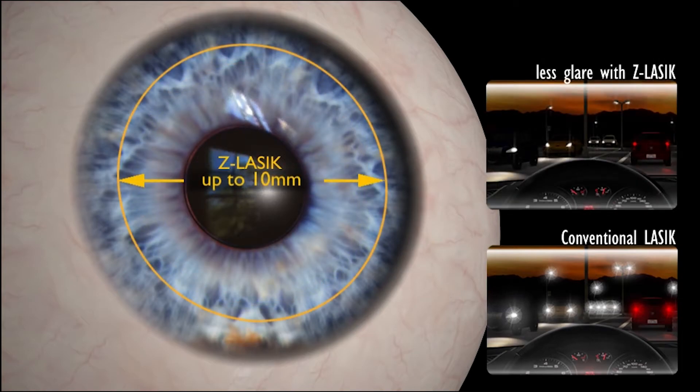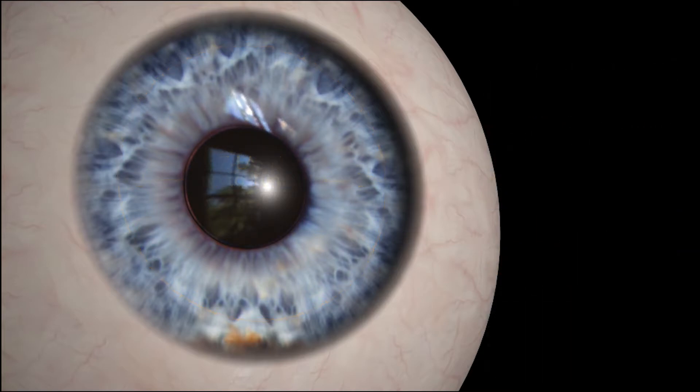Consequently, the quality of vision, particularly at night, in poor lighting or reduced contrast conditions, is markedly improved.